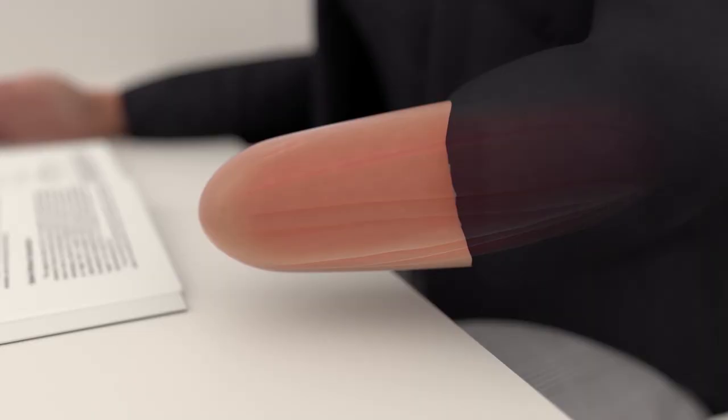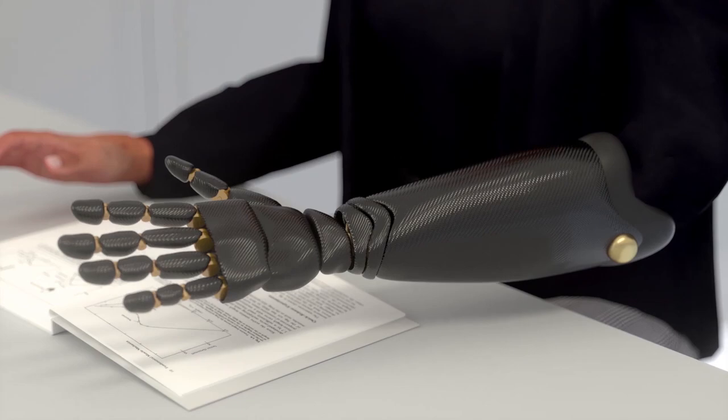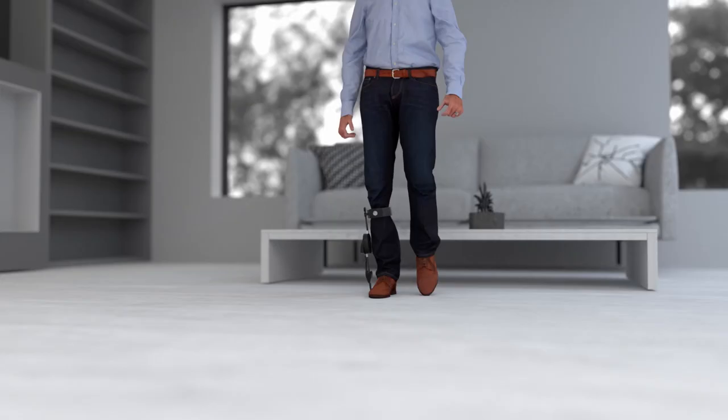In addition to enabling scientific exploration, magnetomicrometry will provide persons with limb conditions improved control over assistive devices for the mitigation of their movement challenges.